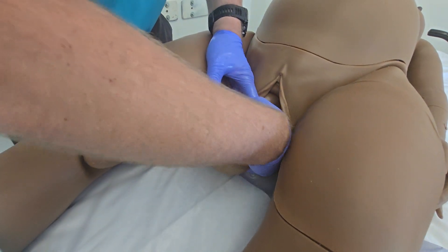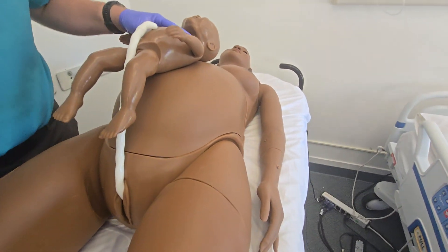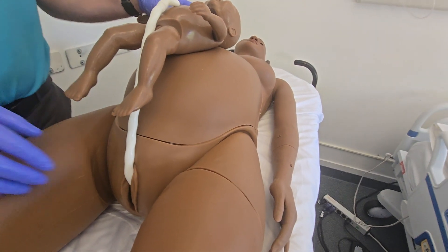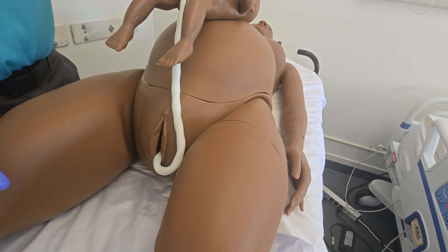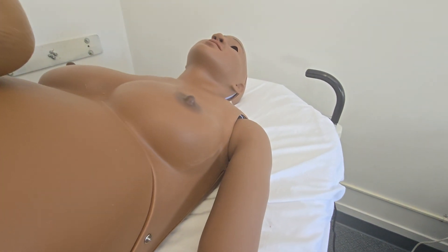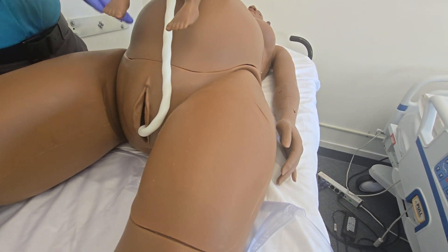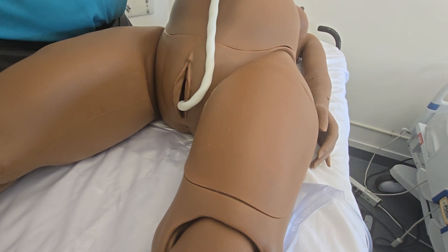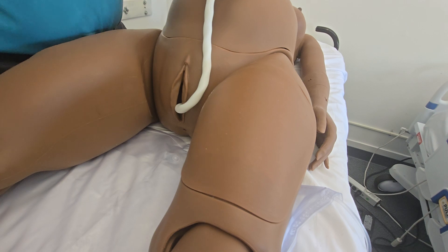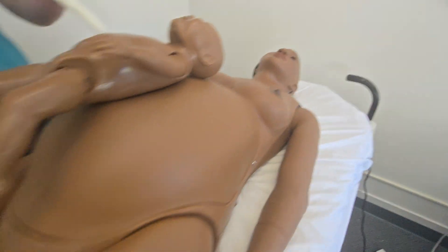We can now deliver the rest of the baby — aiding the shoulder being delivered — then rest the baby on mom and hit confirm baby delivered. Those confirmation buttons that pop up wouldn't be there in an automatic scenario; it would just go through the stages automatically. One thing to note about the placenta: you can't pull it out quite yet until the delivery module moves back up in the mannequin, because as the delivery module pushes the baby down it covers the placenta pocket. Once it says delivery module moving back, that means the placenta is deliverable and we can present the placenta as well.